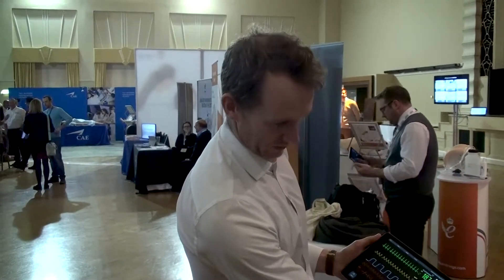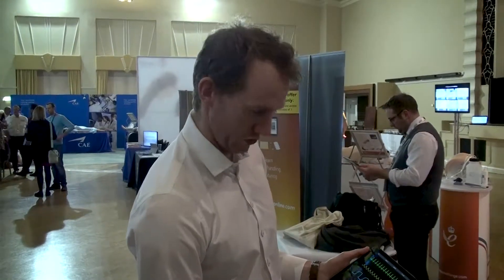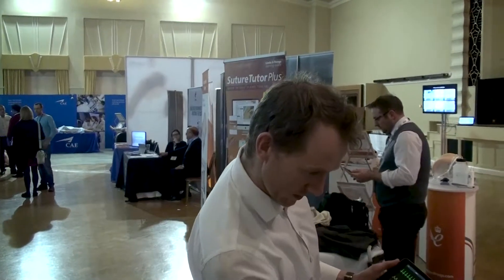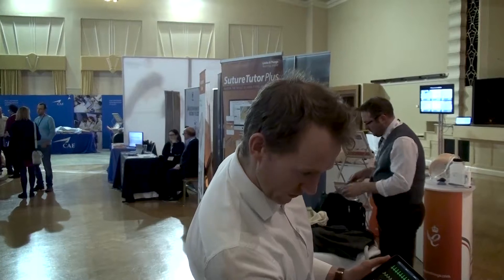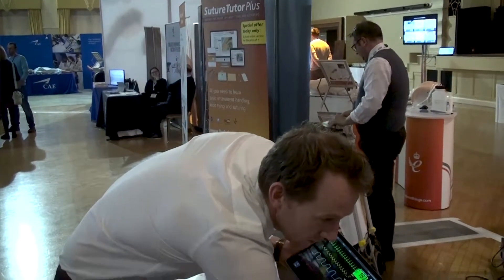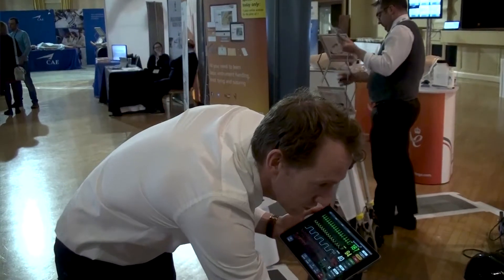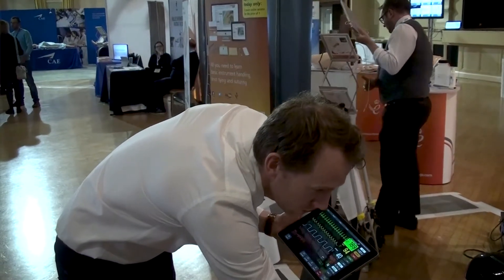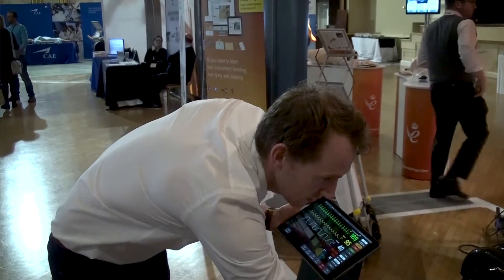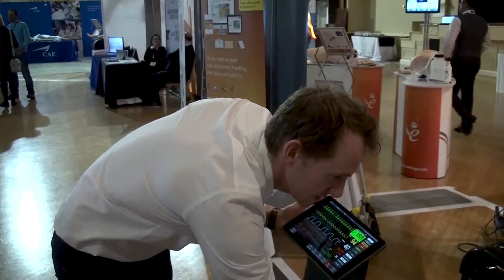The best thing about this product is that it's very intuitive when it comes to scenario building as well. You can create your own scenarios here, all in real time. You simply enter a name — for example, 'Trauma Test' — and build from there.